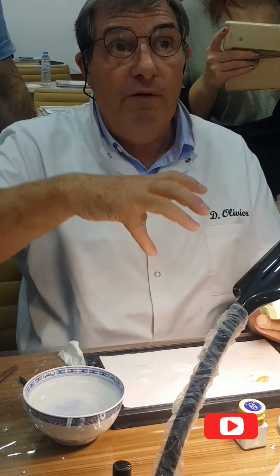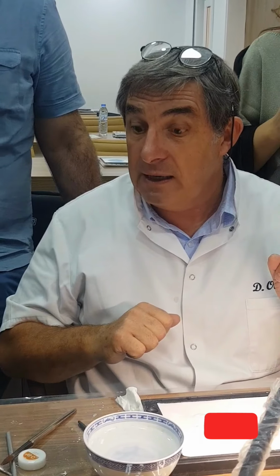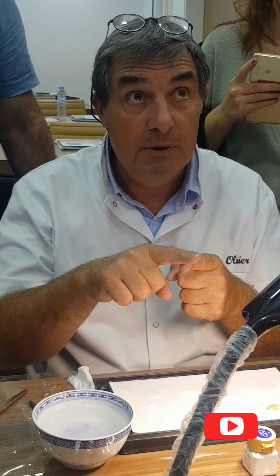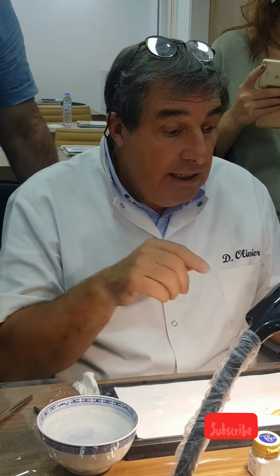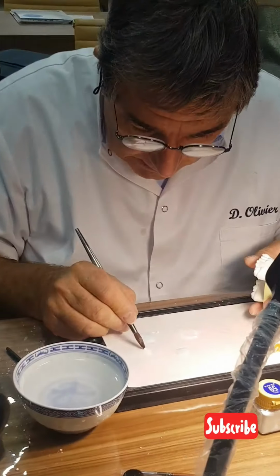I'm going to now overbuild my crown 10% over with the enamel. I'm going to condense, and after condensation, my crown and my porcelain will be dry, and only at that time will I draw my crown and conserve it after firing. If I draw all my curves in a wet porcelain, you lose a big part of your work. No, I don't have time to lose time. You understand?